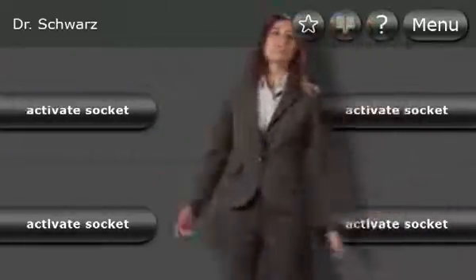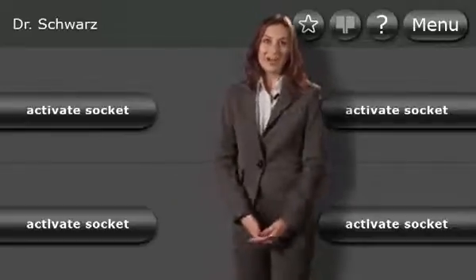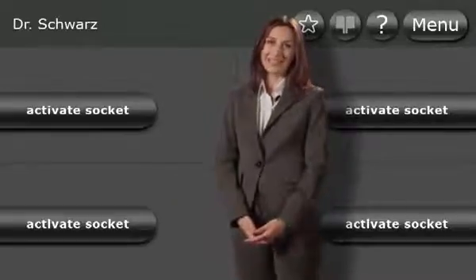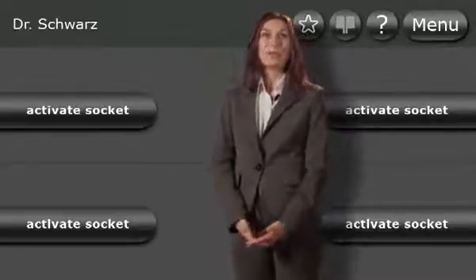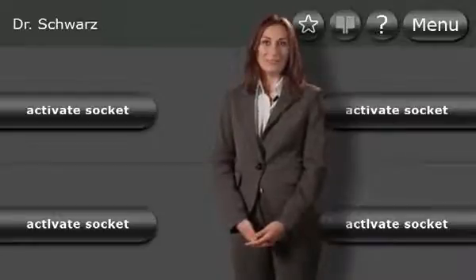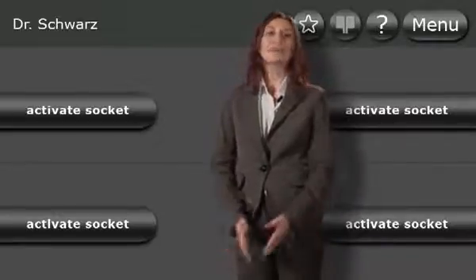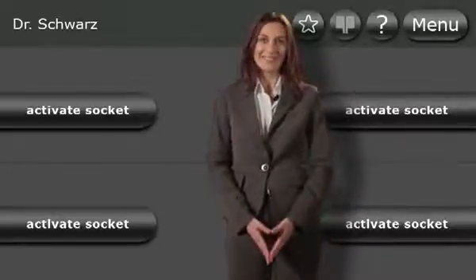You have now seen the main functions and operation modes of ARC 400. Enjoy the benefits of the intuitive operation. Thank you for your kind attention.